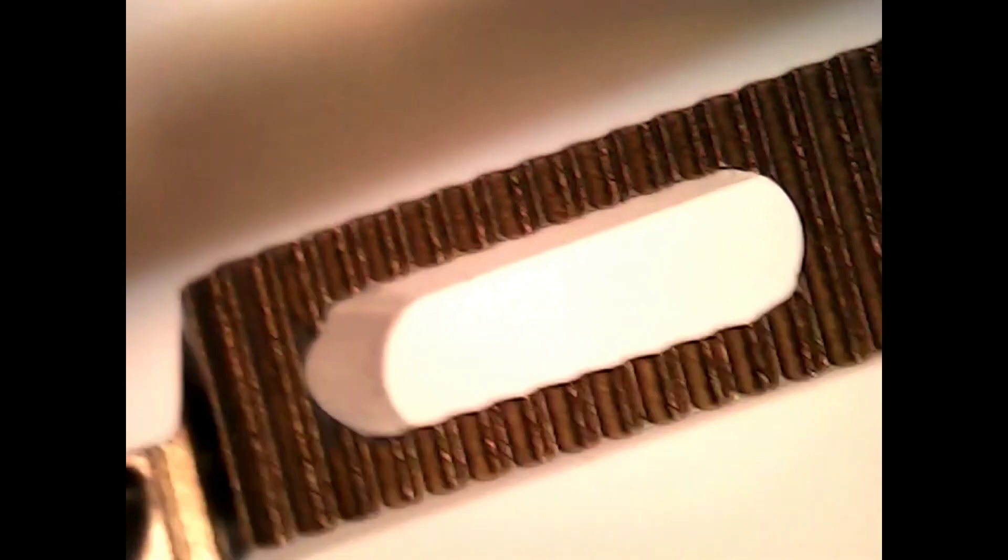That's another good look at the pulley system. Take a look at that jaw, keep that instrument open and make sure that the jaws don't harbor any bioburden or any foreign matter that should not be going into the container or into a patient. That's how you inspect. Again, I'm out of my vision here trying to get back into my field of vision, inspecting inside so I open the jaw up all the way, looking at the base there.